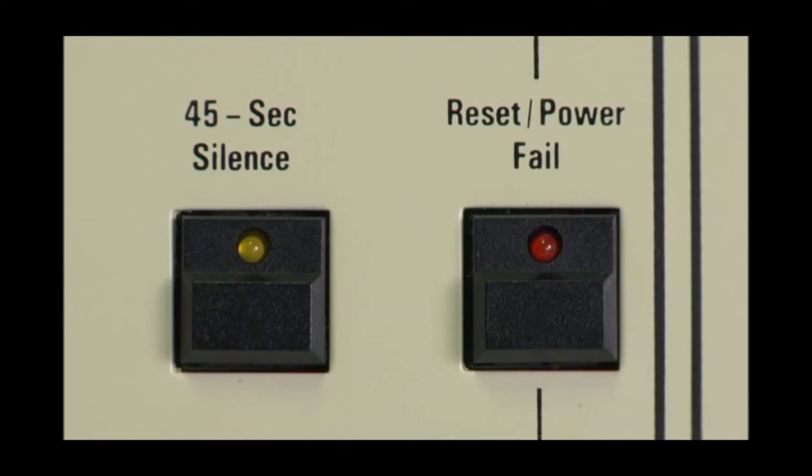The power fail alarm provides an audible and visual signal indicating loss of electrical power to the ventilator. This alarm is also triggered when the ventilator is powered off. To silence it, press the reset power fail button.